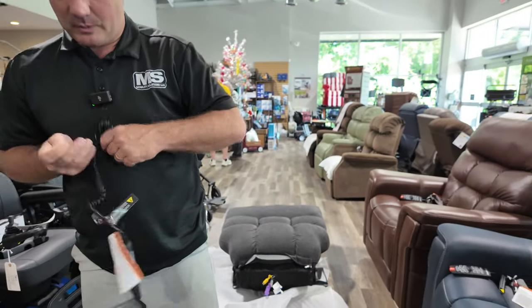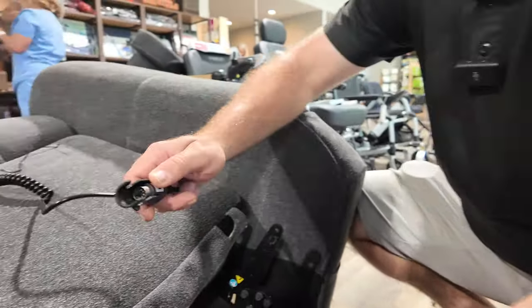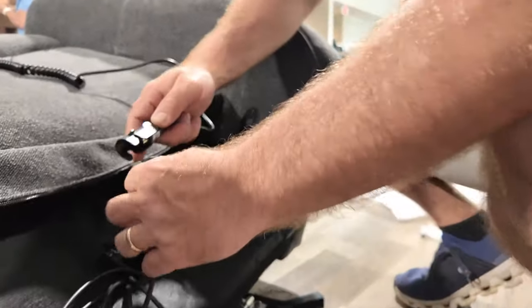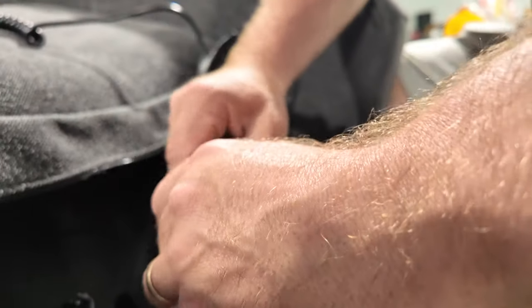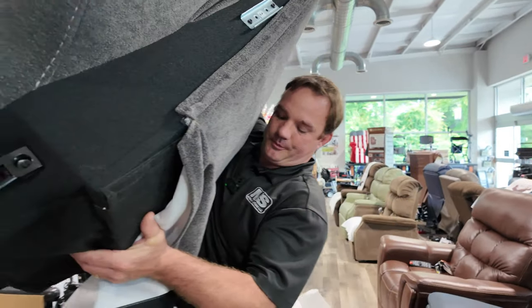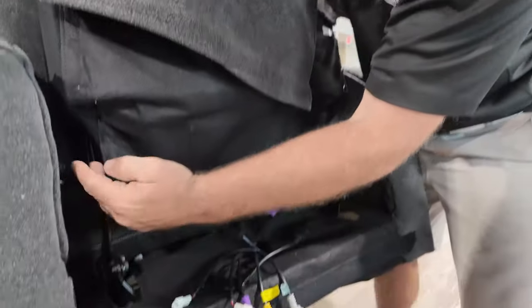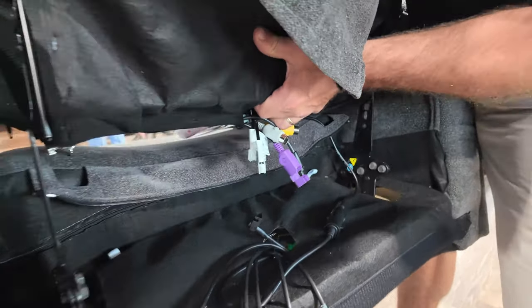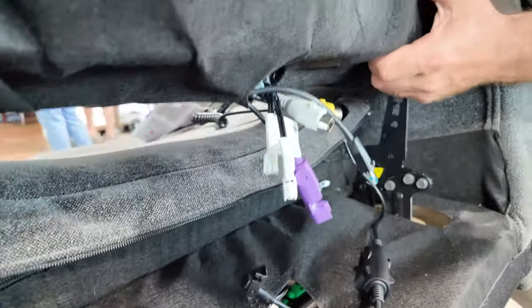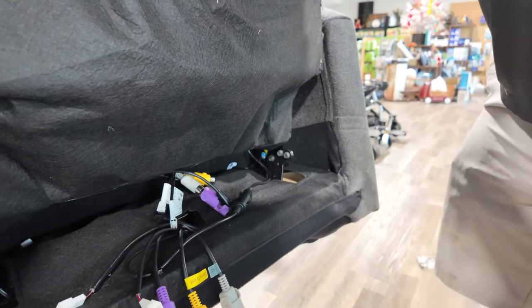Take this remote — first thing you want to do is get it on a charger. Everything's color-coded. Bring it right through here and connect it. Done. We raise this thing up just so you can see how to get it on, because it's heavy — and you just connect it, similar to how you see other chairs assembled.